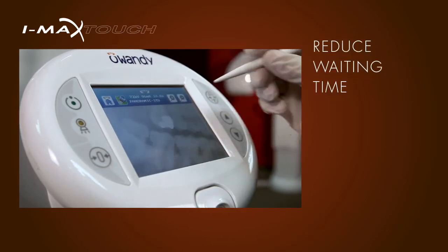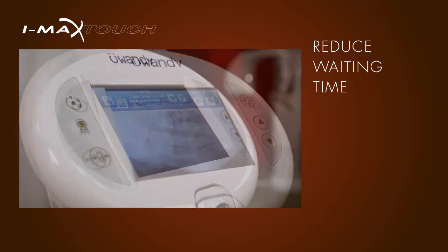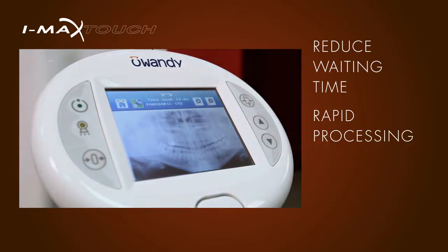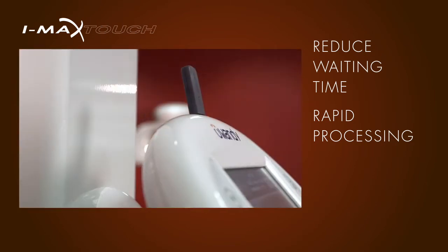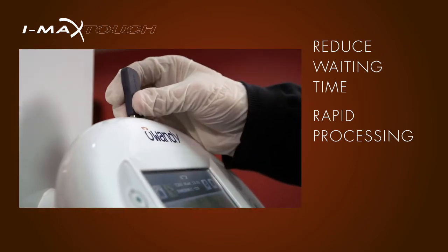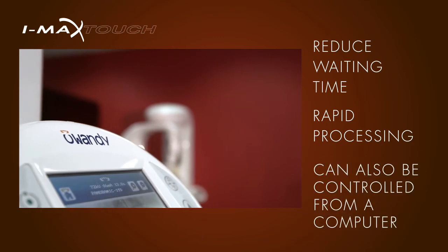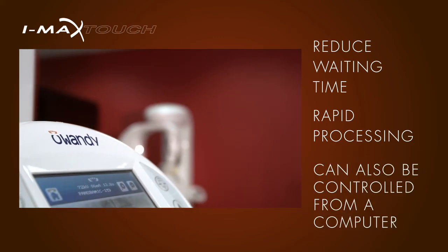Rapid processing of high-definition images and easy data portability improve workflow speed and resource sharing. A USB slot allows the user to acquire images directly onto a USB stick, and the iMax Touch can also be controlled from your computer.